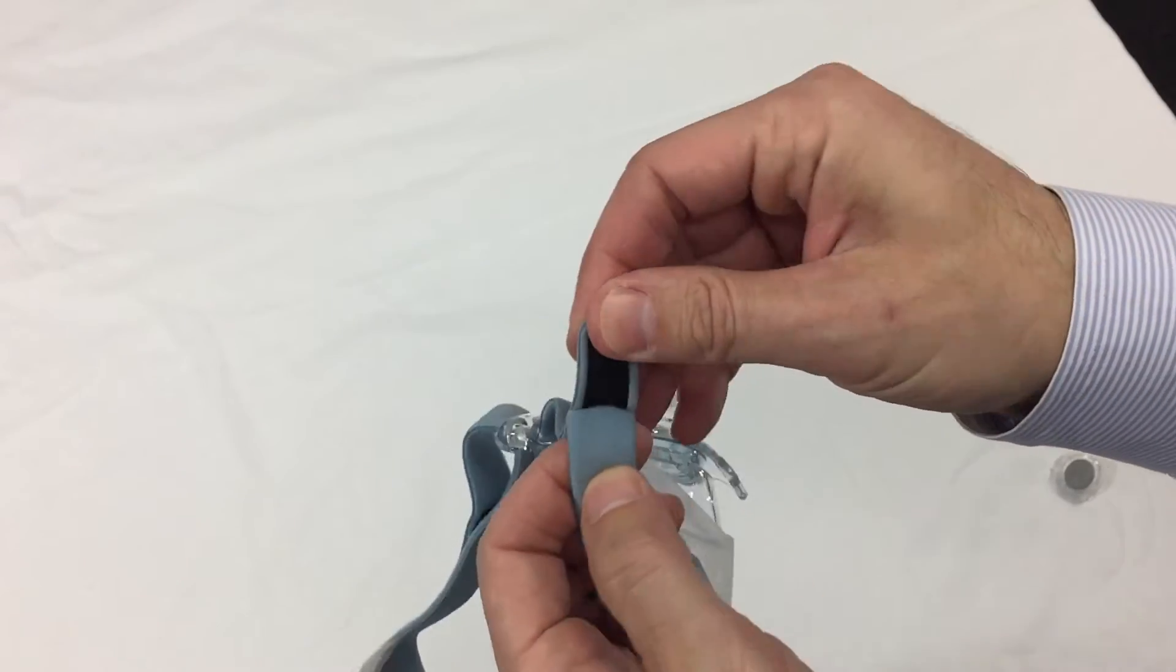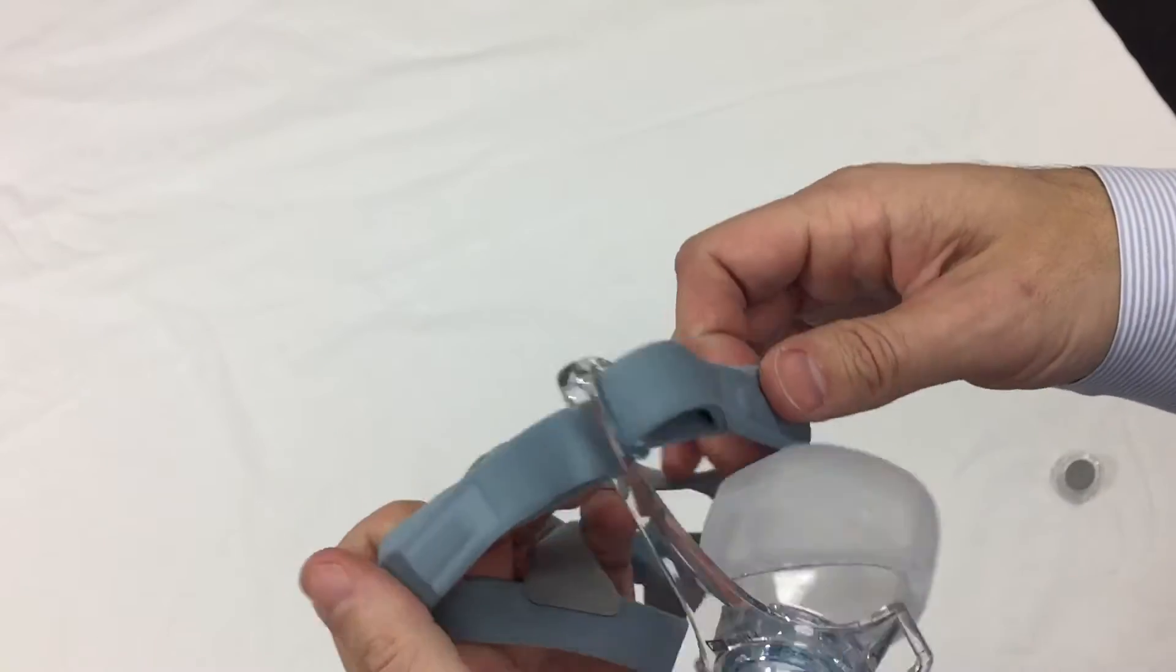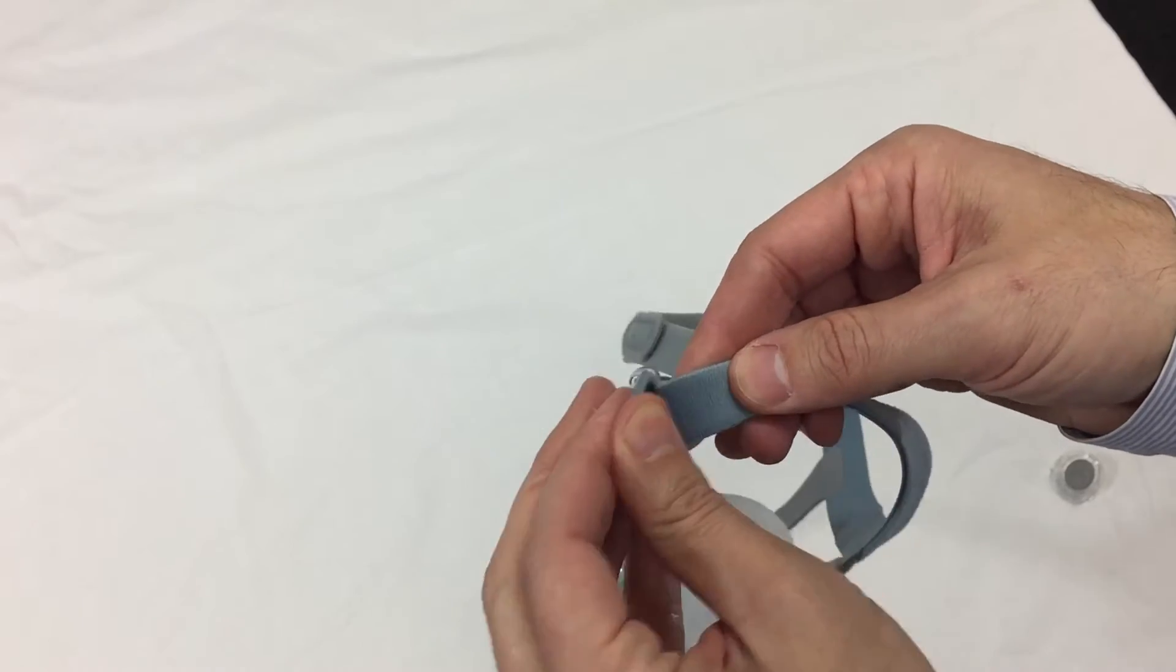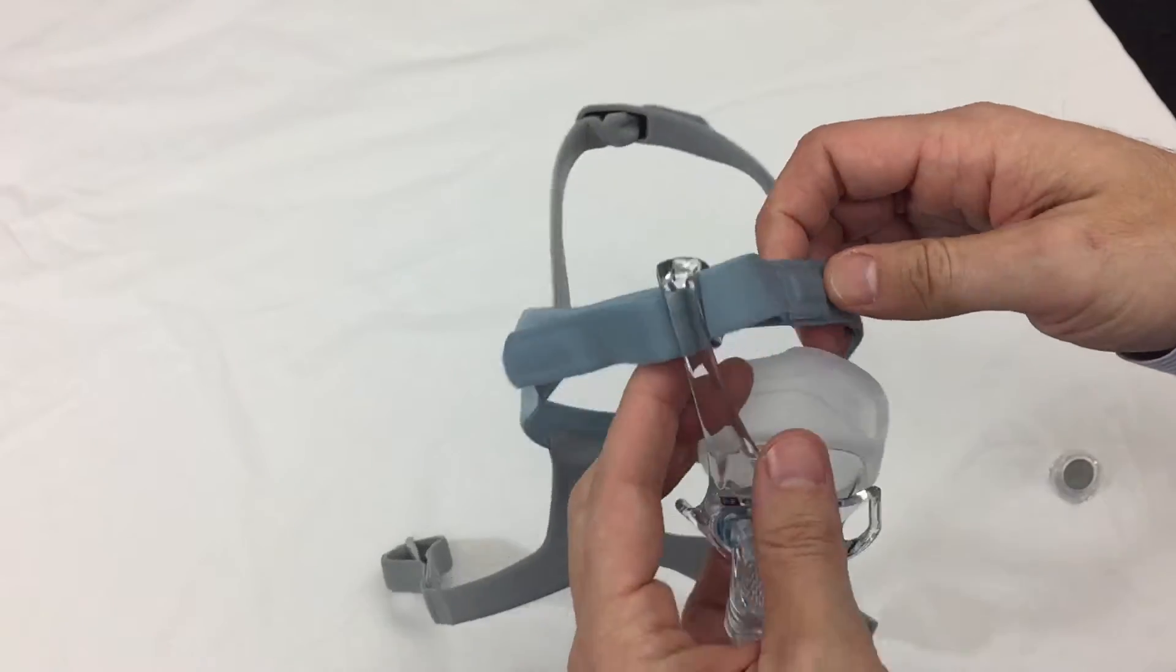We'll take that off. This is the new Velcro. Seems to be much tougher than their original. So we're thinking it is going to last longer. It's stitched into the headgear nicely.